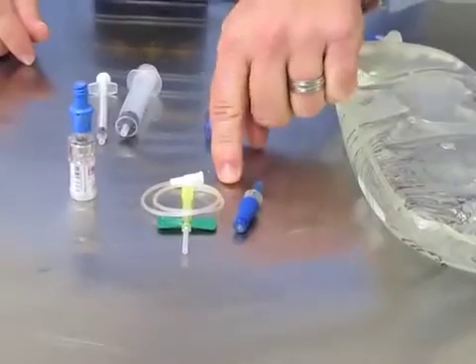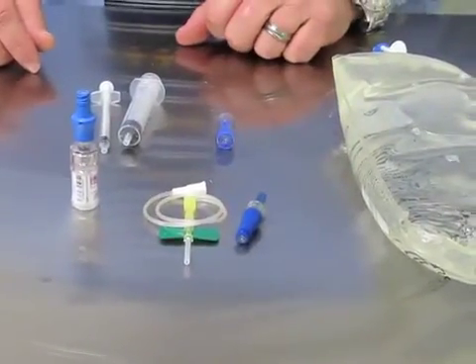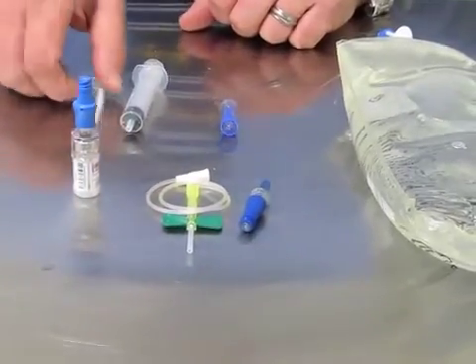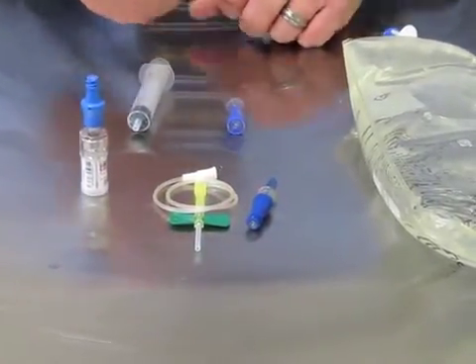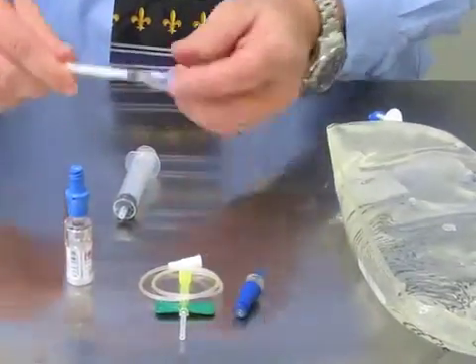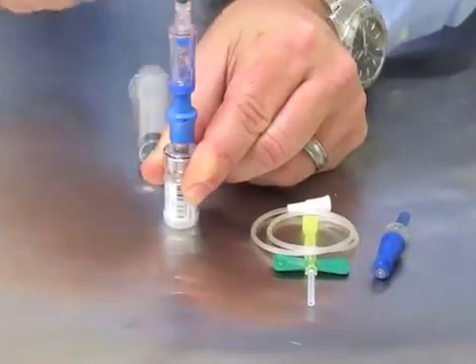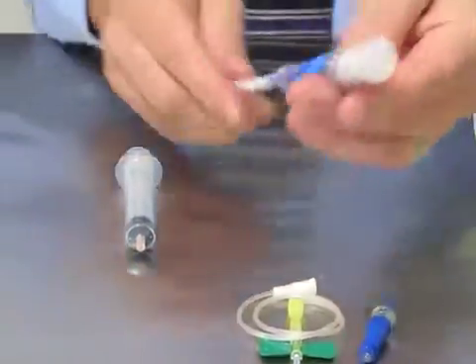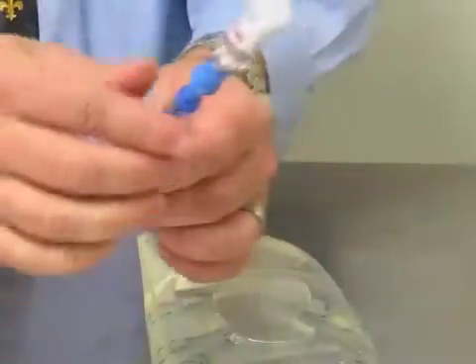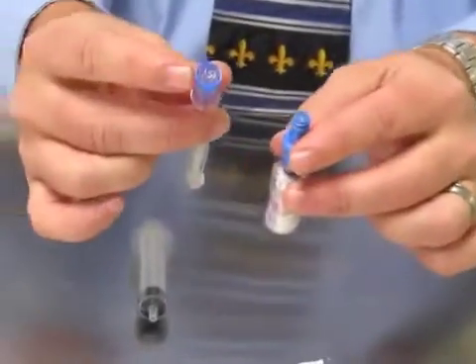The first example I'm going to demonstrate is IV push through a winged infusion set. Often this is done with a vincristine dose. I'm going to start with a 1cc syringe and a Spiros. I put the Spiros onto the 1cc syringe, drop my dose, and disconnect. This is closed and this is closed.